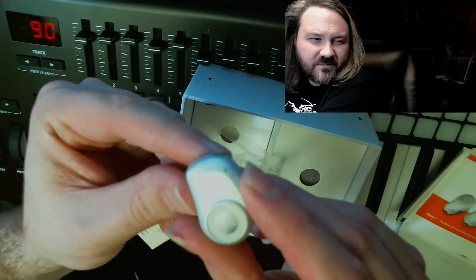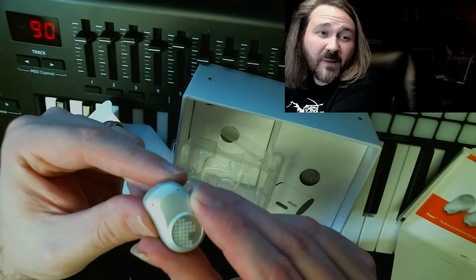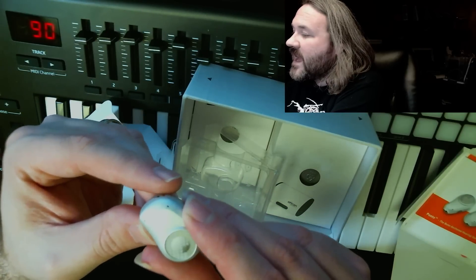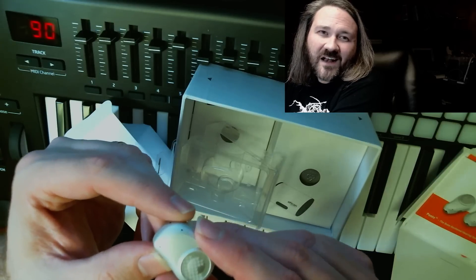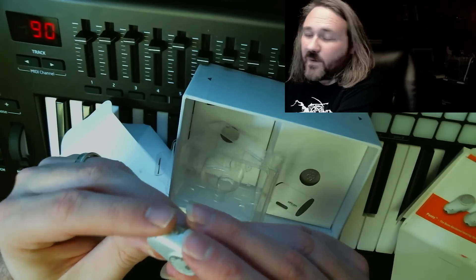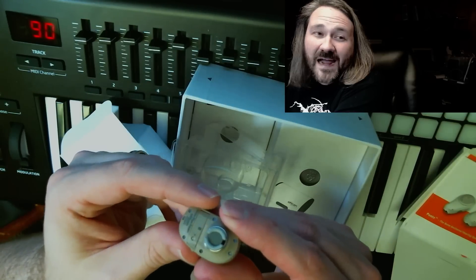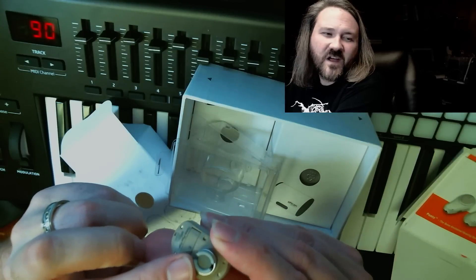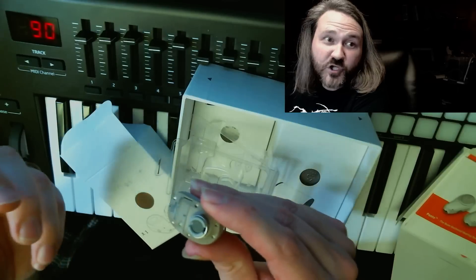There are two very small holes — those are the microphones. There's one in the front and one in the back, which go through an analog-to-digital converter, get processed by a very small computer inside, and then get converted back into an analog signal on this end, that attaches to the implant and gives you basically like a speaker sound but in your skull.